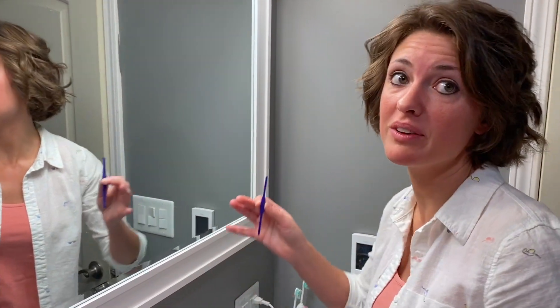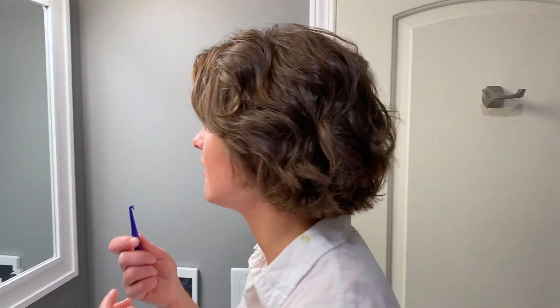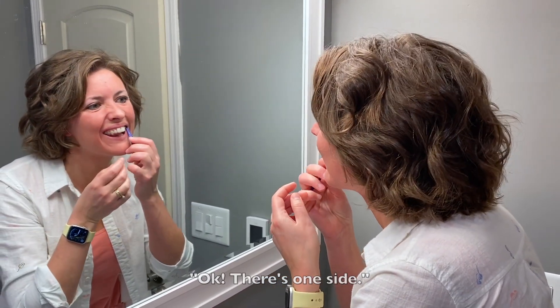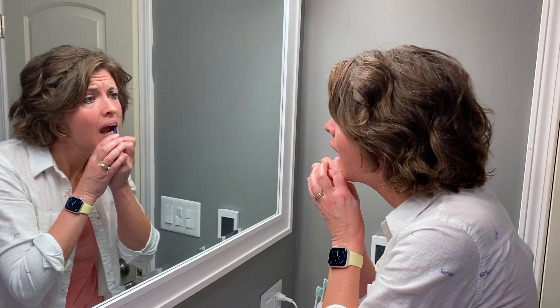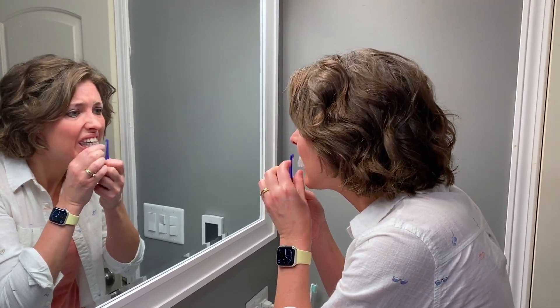Okay, I just need to take a break a second. I just pulled on that one and it kind of pulled on the plastic a little bit, and now it feels like there's a little edge there, so that's not good. It seems so easy on the video. Okay, there's one side... Ow. Okay, kind of there. My teeth hurt — they're just not very happy.